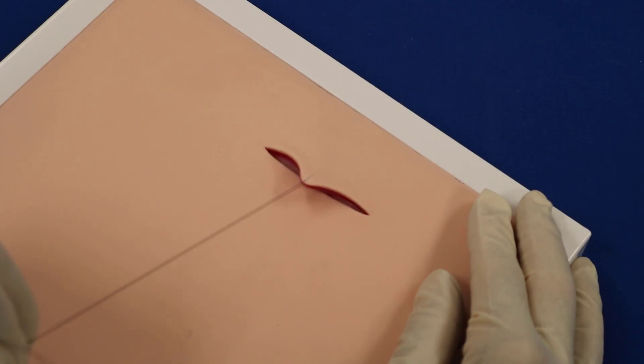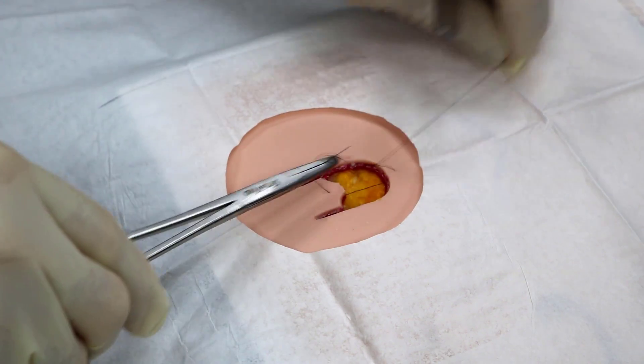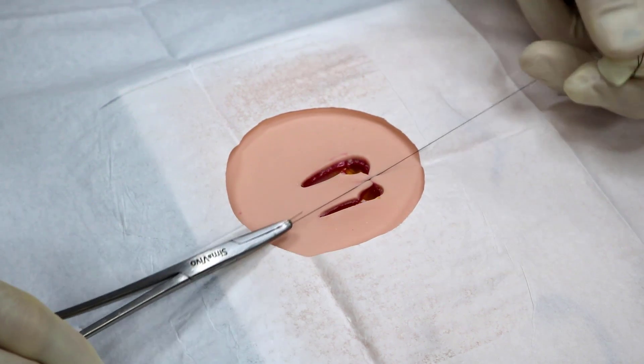Sutures are held firmly in place without pulling through, allowing you to understand and practice skin advancement and rotation.